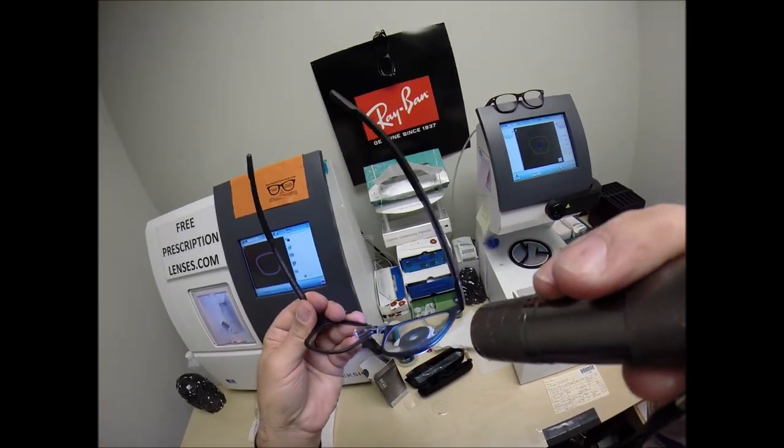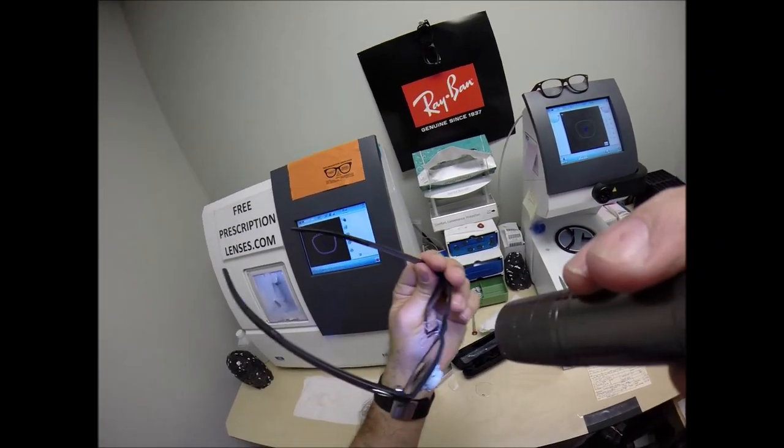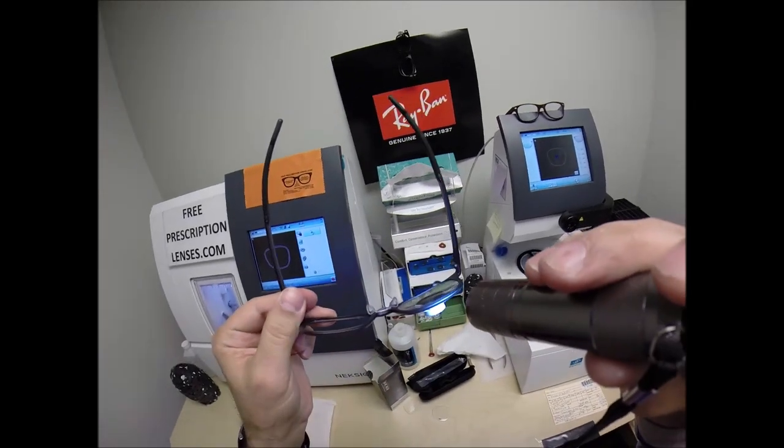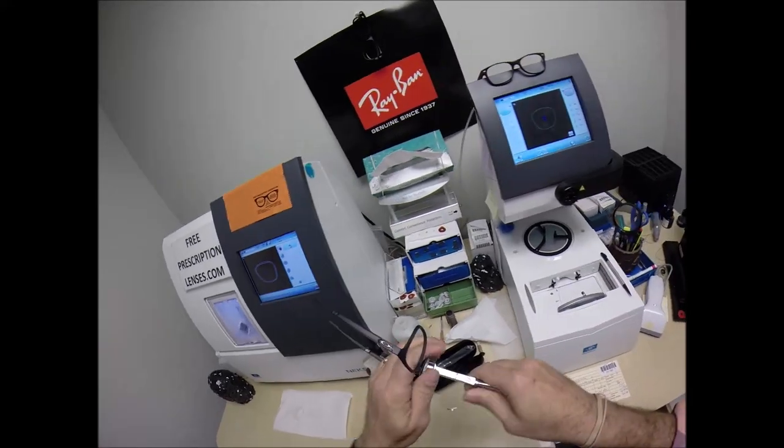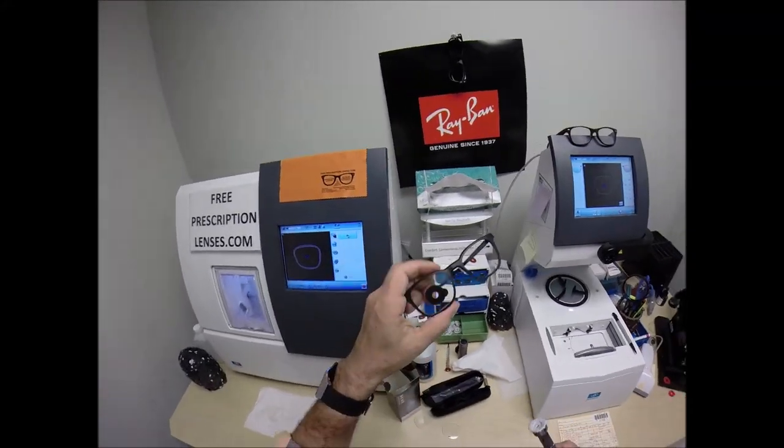Of which, Jim, you got nothing. You got nothing. You got no edge thickness whatsoever. What did I tell you? That's why I use those thinner, lighter weight, unbreakable, bulletproof lenses with 100% UVA and UVB protection.